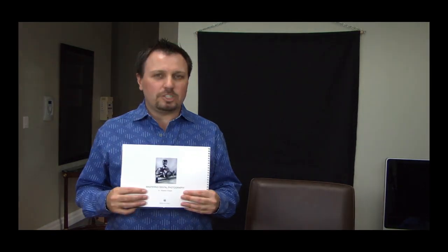I'm showing you basically a 20-image series for patients, which will show everything that you need to show them. There are smaller photography series, like the AACD accreditation series which is basically 12 images, but I felt 12 images doesn't really show me everything I'd like to see. So I've created a 20-image series, and with the DVD you also receive a photo booklet that shows slides from the keynote sections, basic technical information, examples of photographs, f-stop, and all the settings I use.